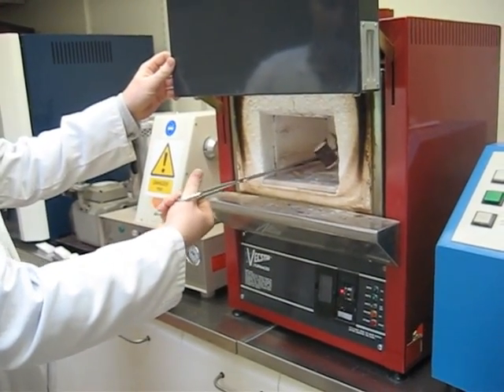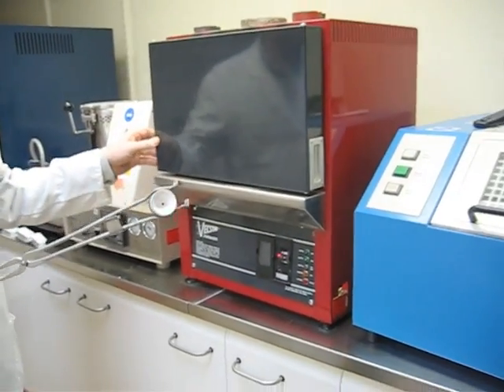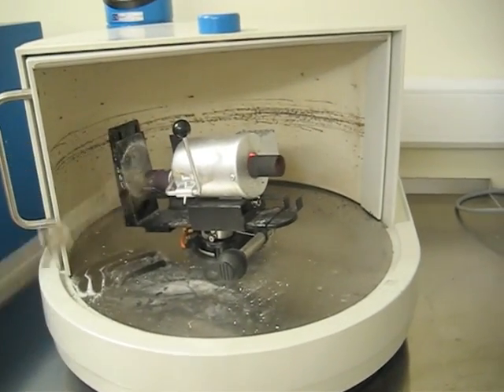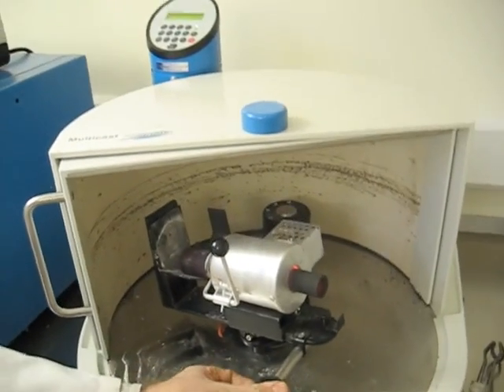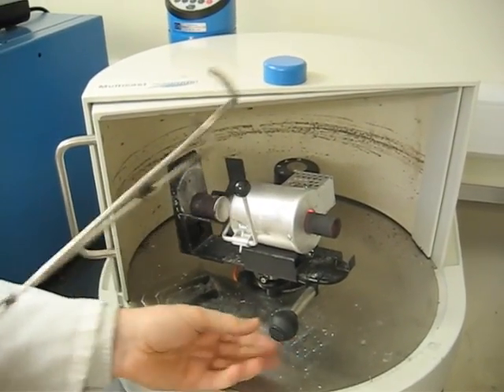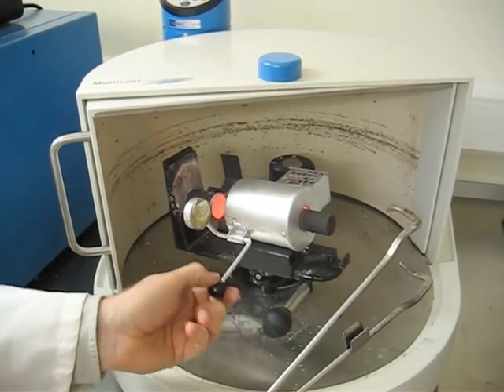Mould's up to temperature then. It needs to be up that high for the expansion as we've already mentioned. Now to stop the metal freezing of course as it goes in. If it was cold the metal would just hit it and solidify straight away. Or not to mention the thermal shock it might just explode. Either way it wouldn't work.